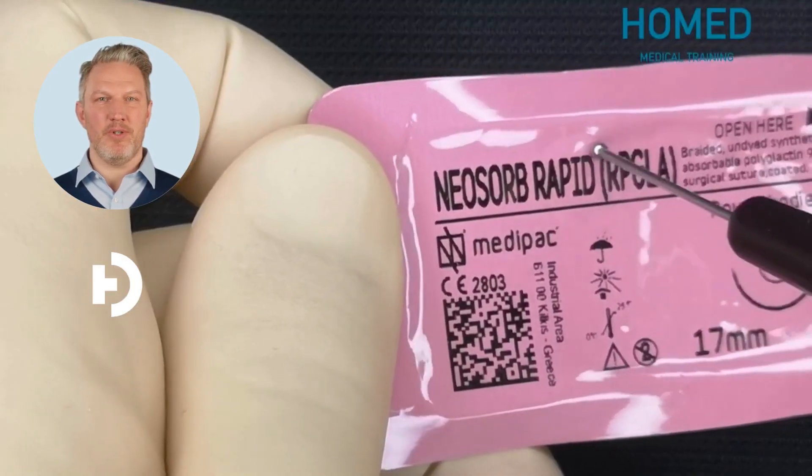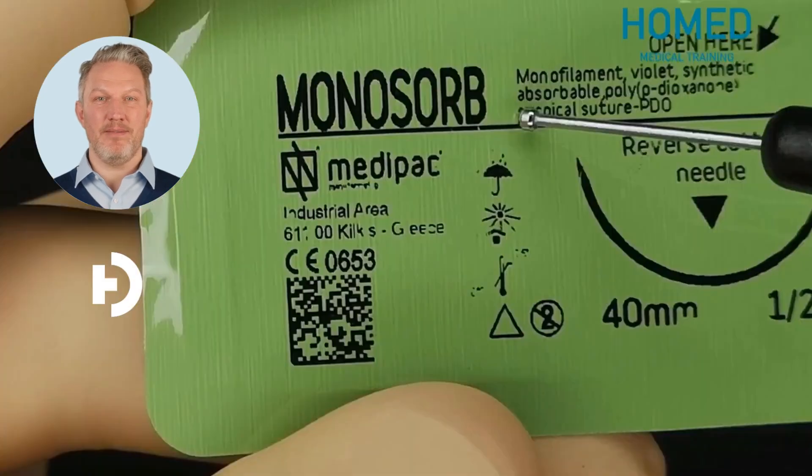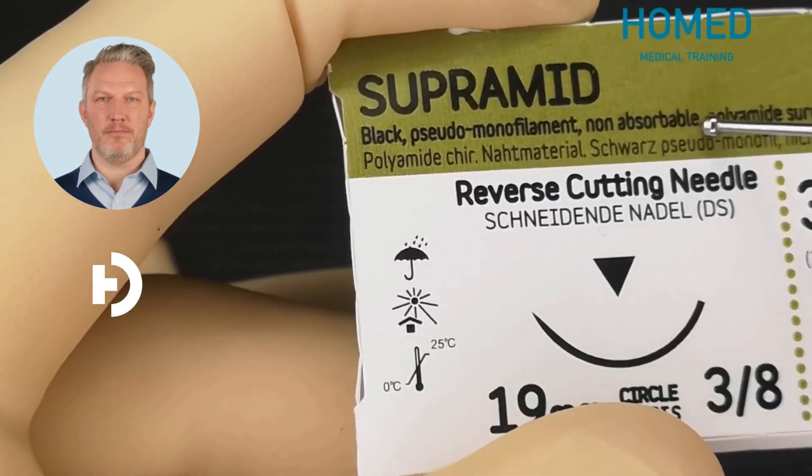I'll also show you how to read a suture package before you open it, because you should never be surprised by what's inside. Before we touch the wound, we step back. You'll learn how to check the whole trauma patient — not just the wound you see. And once that's done, we focus on the wound itself and how to assess it properly. Don't miss the forest for a tree.